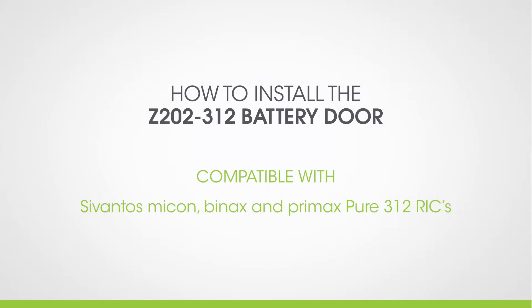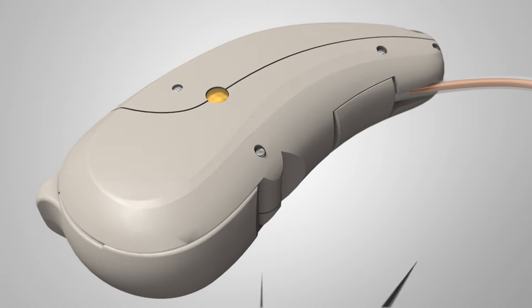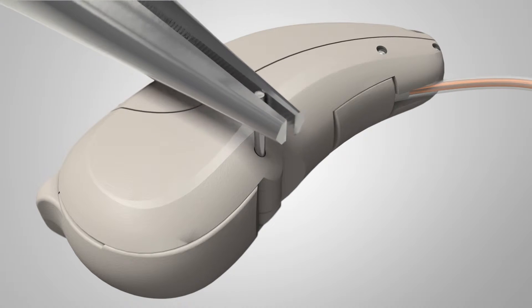This video is going to show you how easy it is to make many hearing aids rechargeable. Specifically, if your hearing aid requires you to simply push the battery pen through the body of the hearing aid to remove the battery door, continue watching.